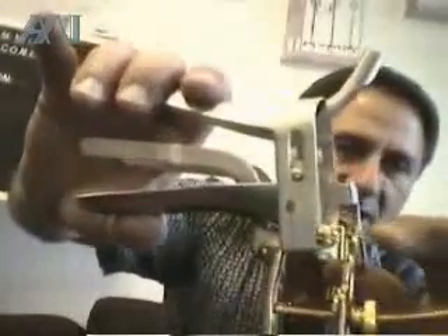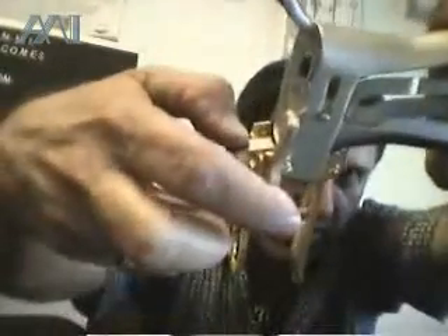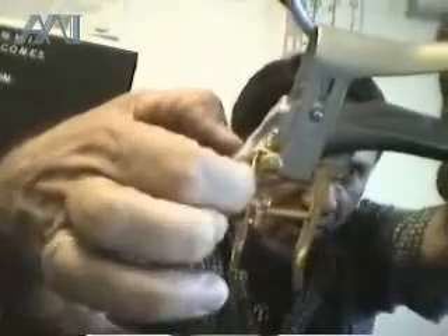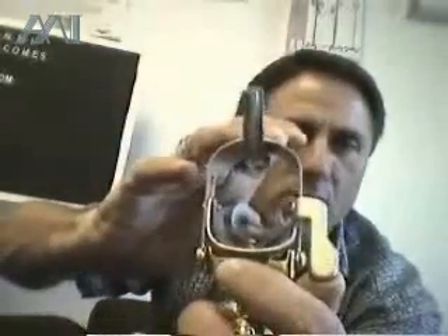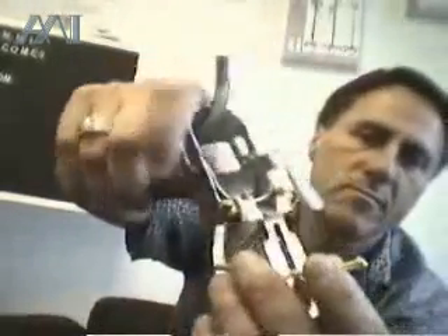got activated. To retrieve: push the spring down and retrieve the handle. To activate: push to retrieve, push the spring and retrieve with your finger right here. So again, activate by pushing in the lever — now you have four blades with a great view of the cervix. To deactivate, push the spring down and pull the handle, close the top and bottom, and bring it out.